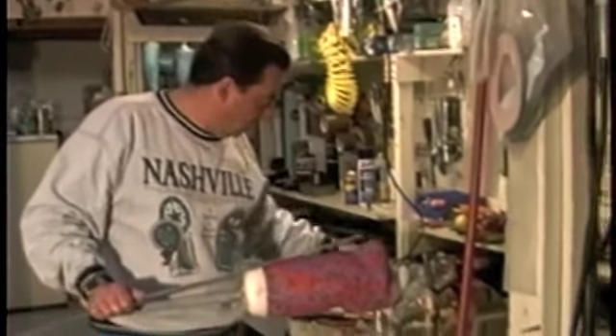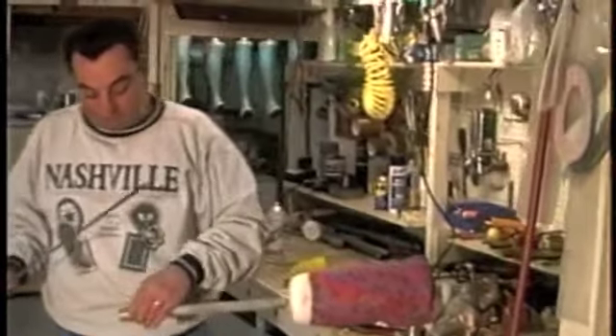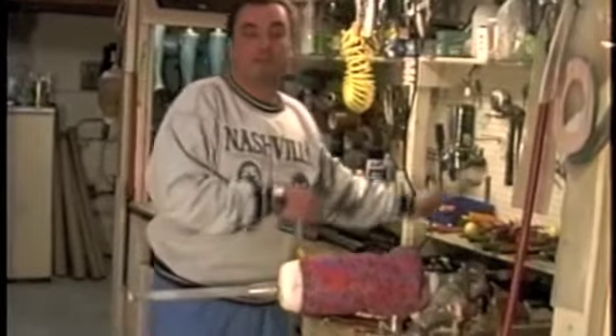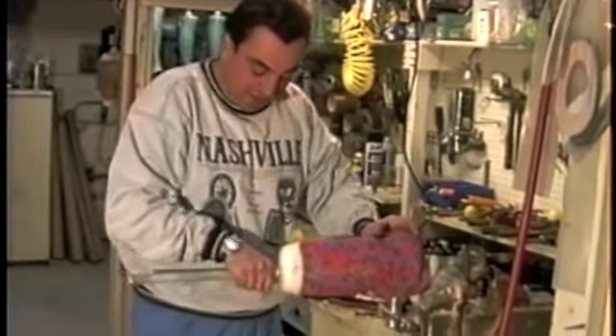In this case we're going to go with a small molding cone, because once you add the molding cone it brings it down to about three and a half inches. That's about the right amount of pylon flexibility for a patient of this weight and activity level.